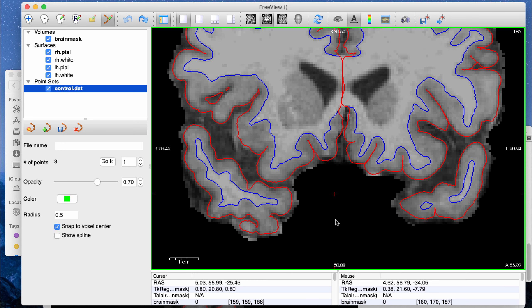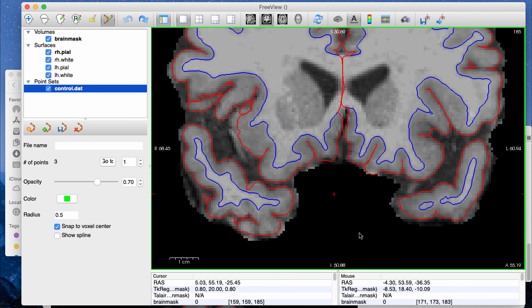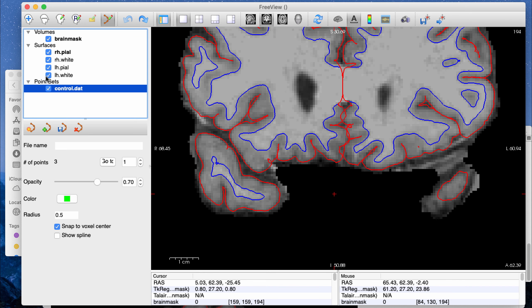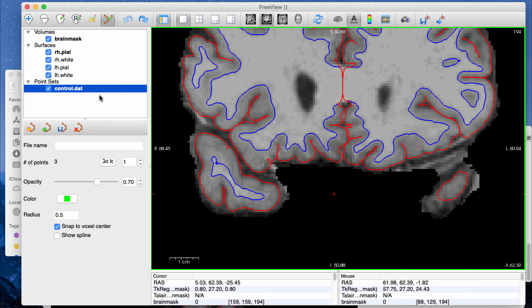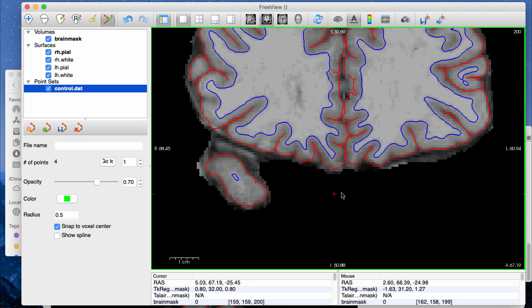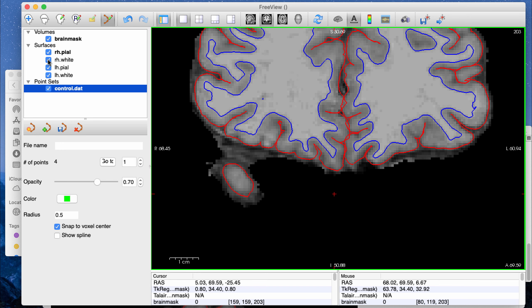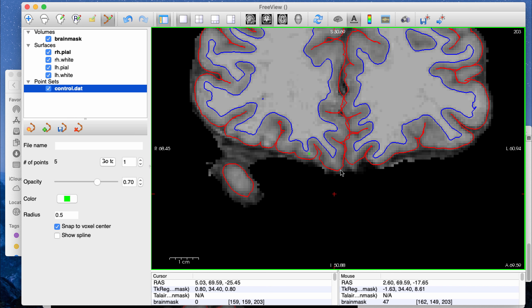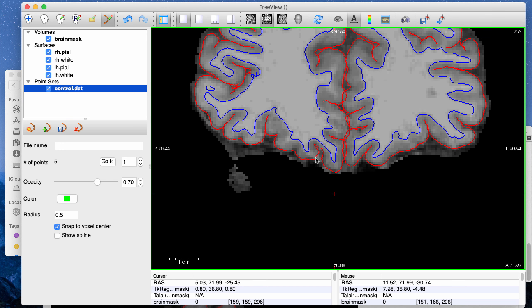Here, looking at the inferior frontal lobe, it seems like it's not completely capturing — it's not doing a horrible job, but it might not be extending far enough south into the inferior portion of the brain, so I can add some dots there. The way I check is I toggle the white matter boundary on and off to make sure I'm getting white matter. It seems like in this area the white matter is not being picked up completely.